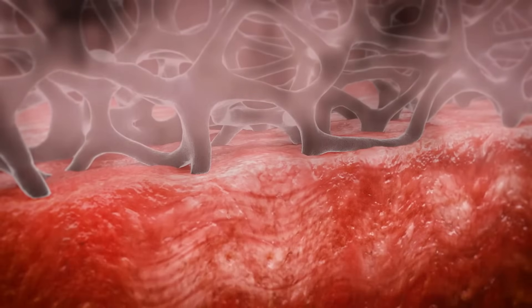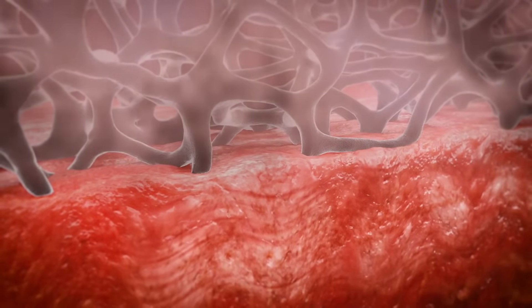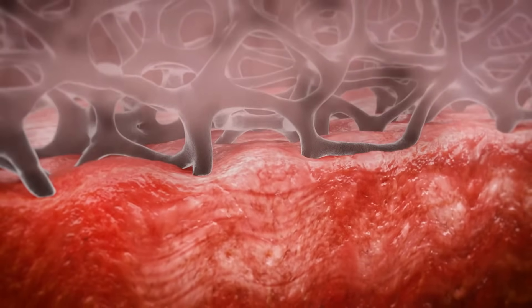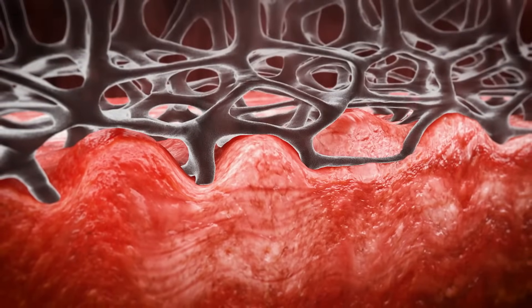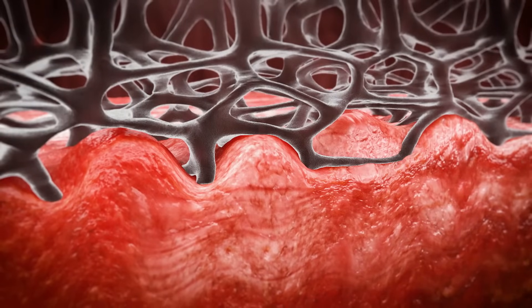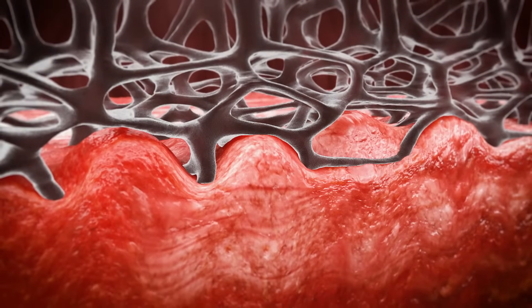The biological responses are initiated as an effect of microstrain, which results from the manifolding of negative pressure across the proprietary 3MVac granufoam dressing to the wound surface. This creates areas of cell surface strain, also called micro-deformation.